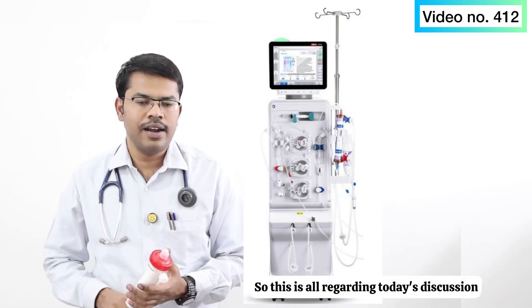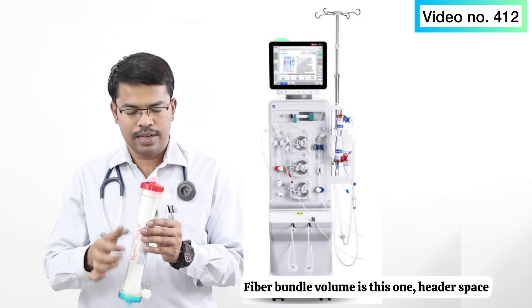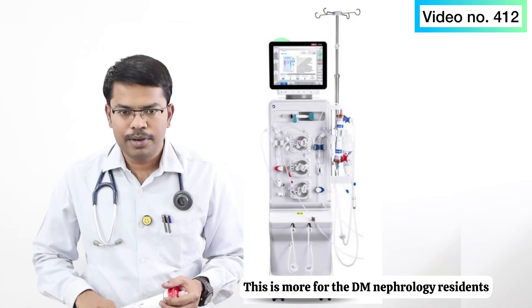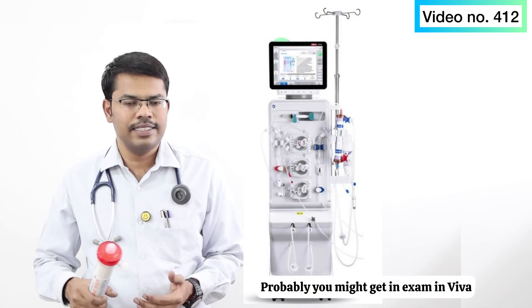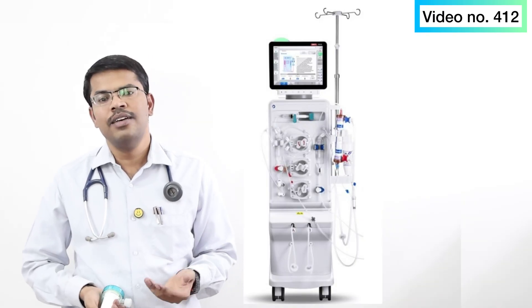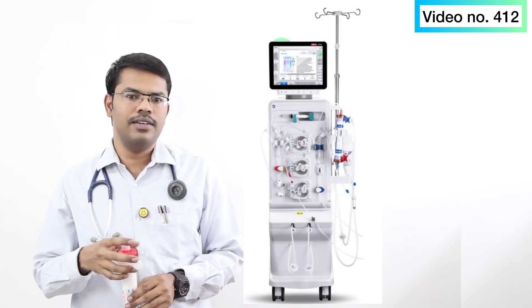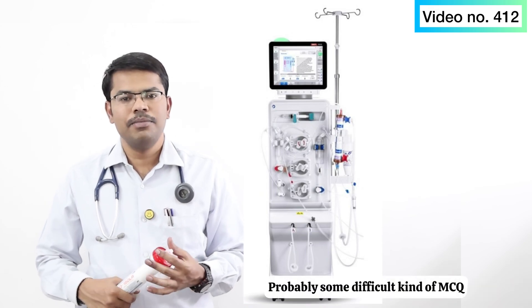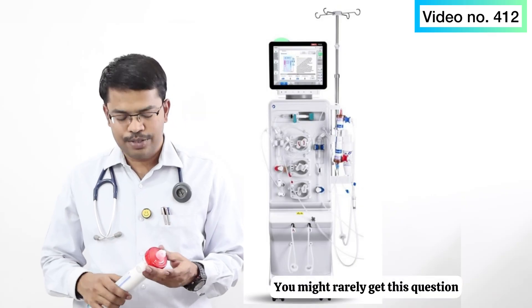In summary: fiber bundle volume is the active diffusion space, header space is the collection area, and total cell volume encompasses both. This topic is more relevant for DM nephrology residents and dialysis technologists — it may appear in viva exams. For MD medicine residents, this terminology is less commonly tested, though it may rarely appear as a difficult MCQ.